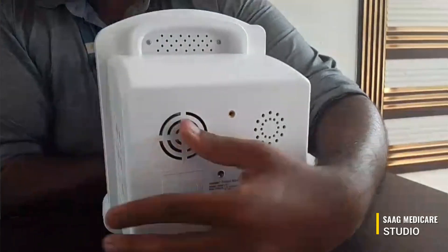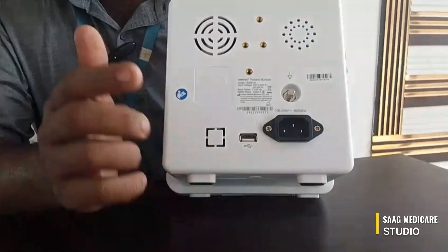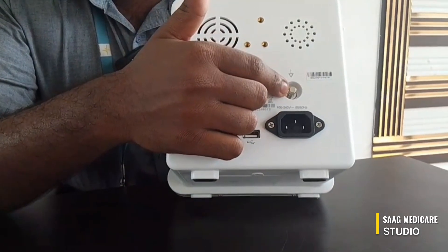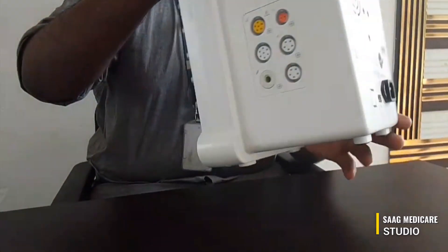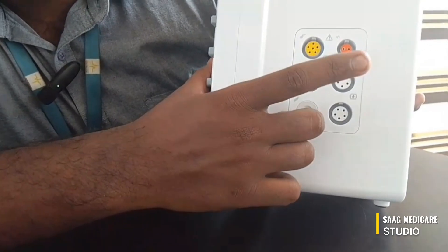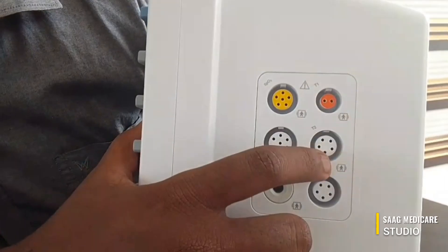At the back side you can see we have our power port AC input, USB port, earthing ports, and speaker port. On the side you can find our SpO2 port, temperature port, NIBP port, and a second temperature port.